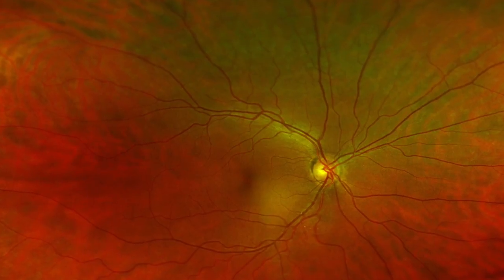In particular, retinal detachments. Only very recently I had a patient who, as an incidental finding, we found she had a retinal detachment.